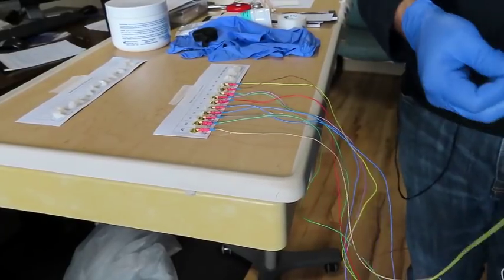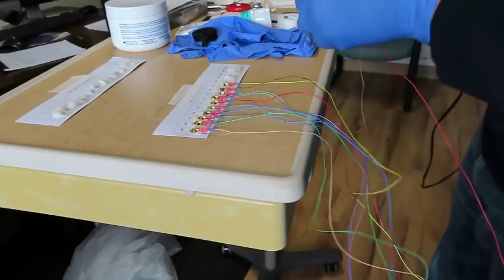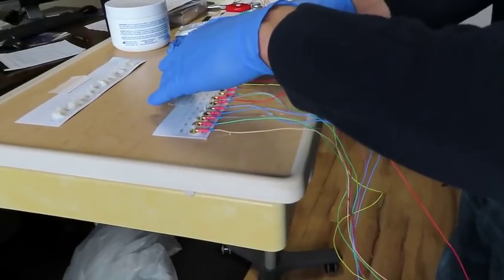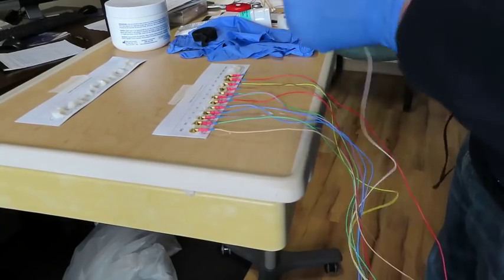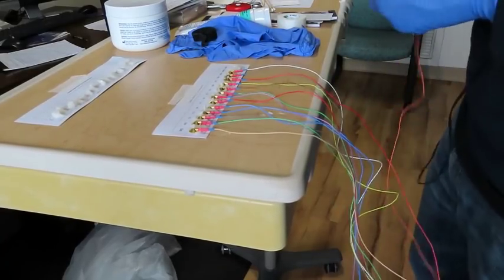You read your patient's chart. You kind of know what you're getting into for the night, what type of study you're running. You've got your equipment going in the background. Everything is pre-calibrated. So all you're doing now is just preparing for your patients to come in. Okay, and again, it just takes a few minutes to get this set up and ready.